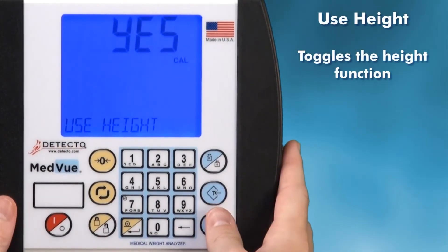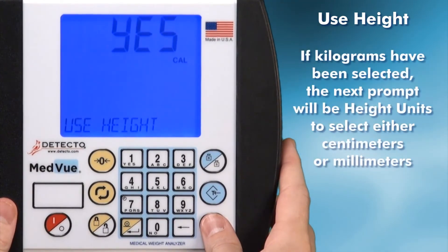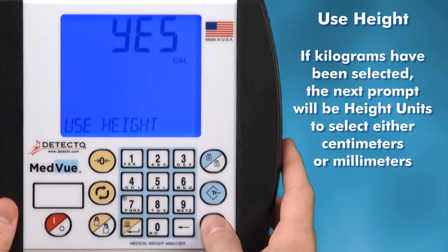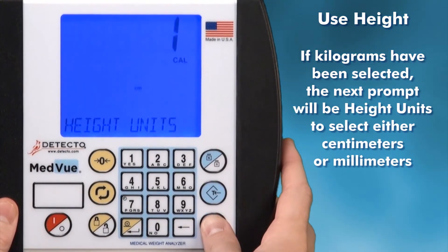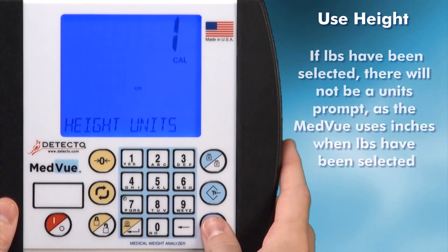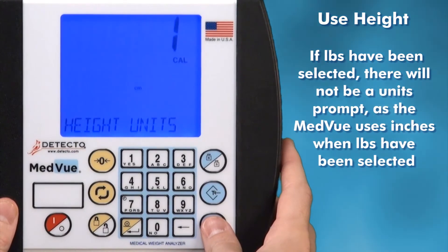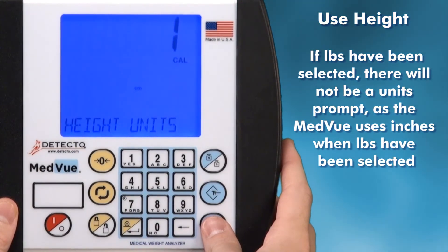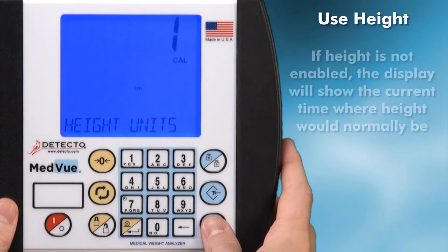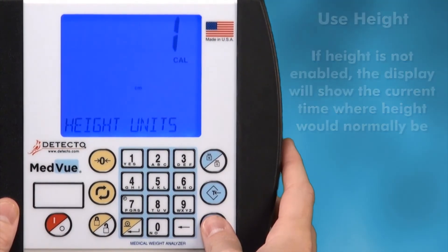Use height is toggled to enable the height function of the indicator. If kilograms have been selected as the primary or secondary unit, the next prompt will be height units, where either centimeters or millimeters may be selected. If the unit is set to use pounds, there will not be a height units option, since the MedVue can only use inches when weighing in pounds. If height is not enabled, the display will show the current time where the height would normally be shown.